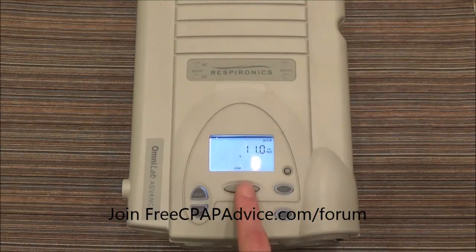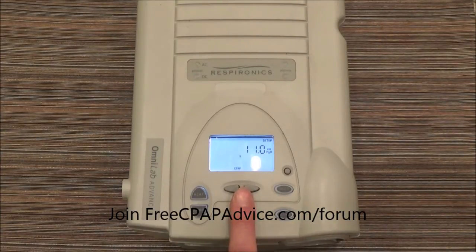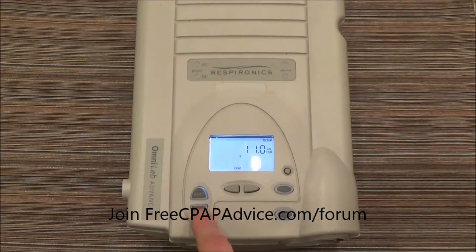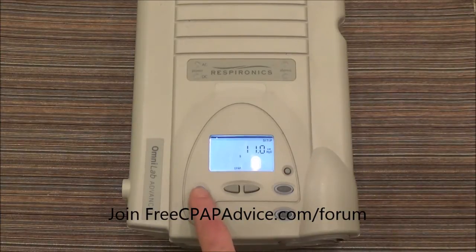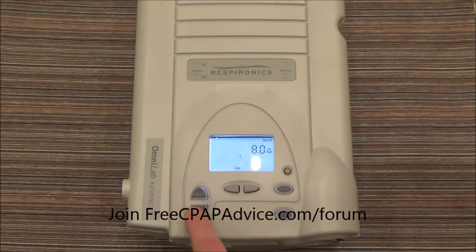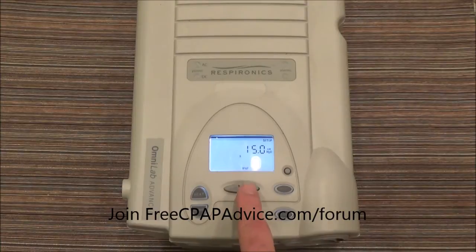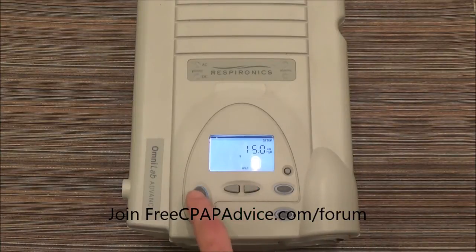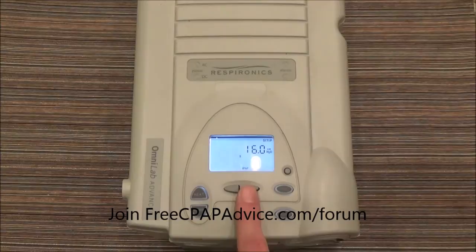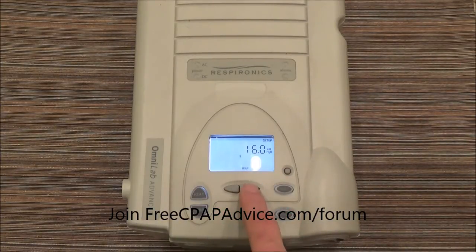You can go back and forth within here, but right here you see that it's EPAP, so what we're doing is setting the EPAP. You go up or down — so if you want to start the patient on 16 over 8, we're going to do 8 over — so there's the 8. Next is IPAP; you want to go 16, or whatever you want. If you're probably in the room with the patient it might be less than that, but this is how you do it.